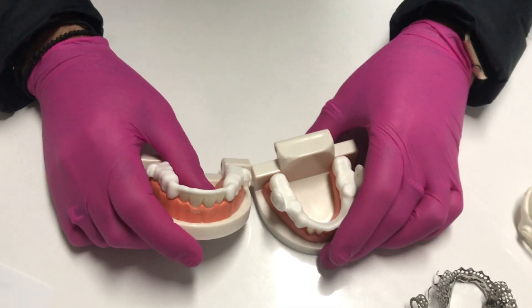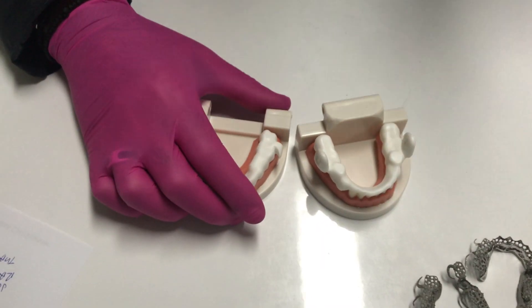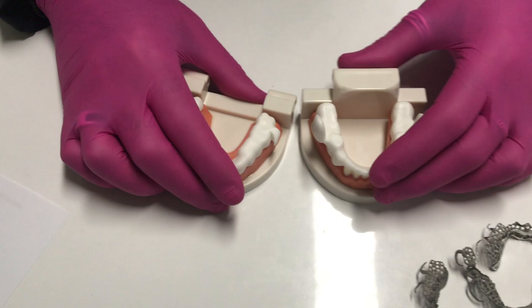Hi, it's Damien here, owner of Proslab Dental and Dental Sleep Lab. Just wanting to run through a quick video on some of our dental sleep appliances.